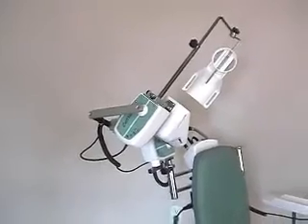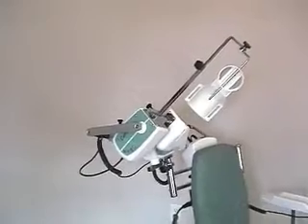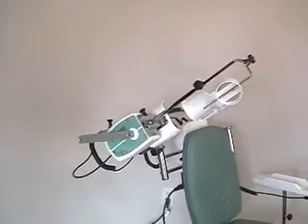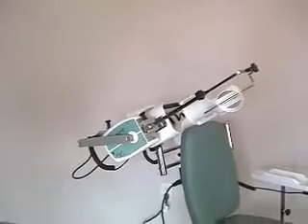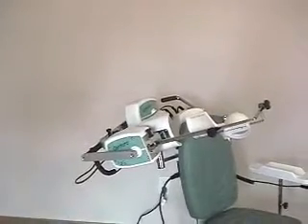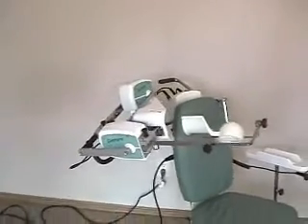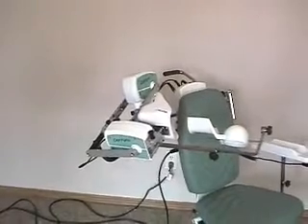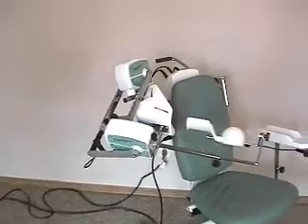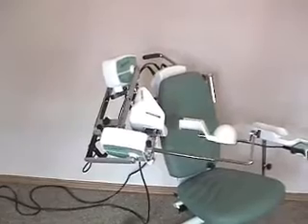By definition, with the Centura Shoulder CPM, you cannot have more degrees of rotation than you do of abduction. For example, if your abduction settings are from 50 to 150 — that's a total of 100 degrees — you cannot have more than a total of 100 degrees of rotation. That would include your negative numbers for internal rotation as well as your positive numbers for external rotation.